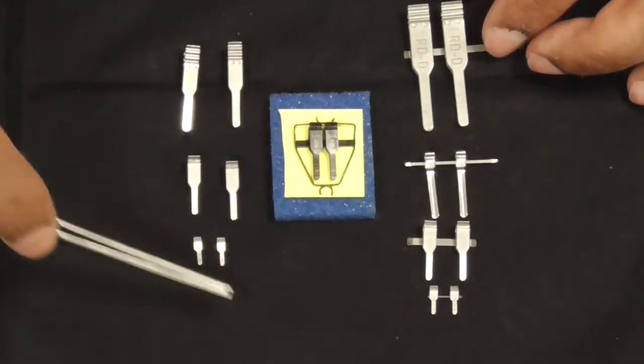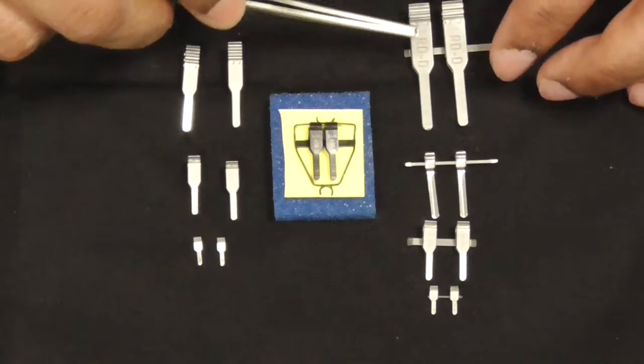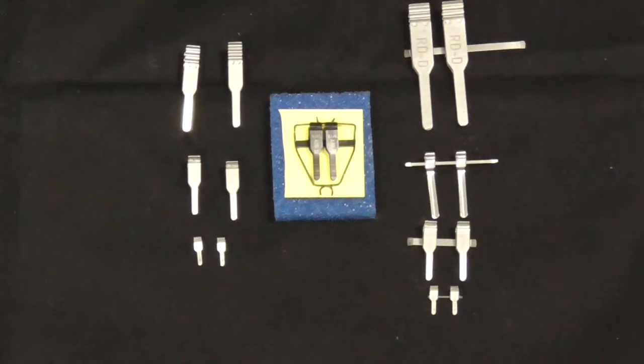There's a wide variety of sizes, from very tiny to much larger, and there are obviously much larger ones as well.